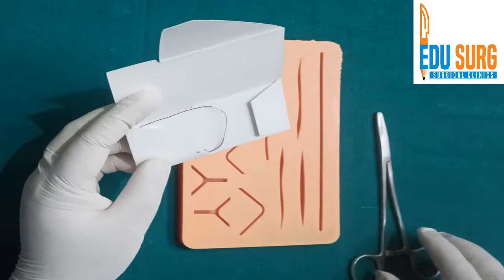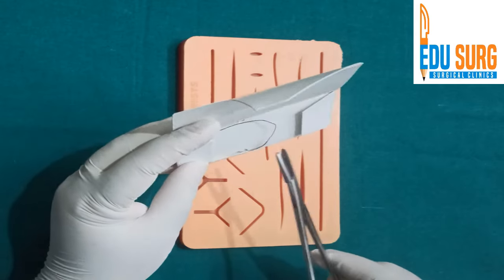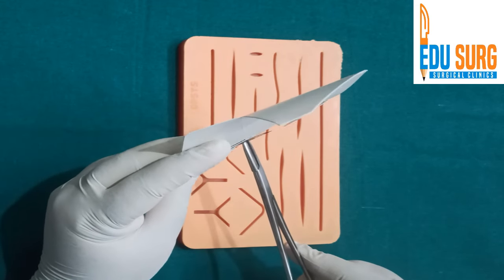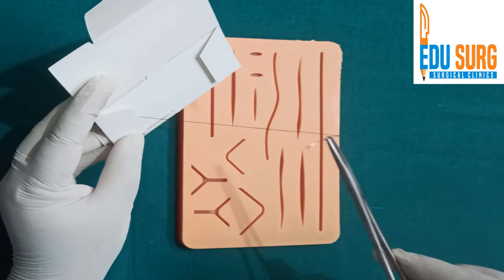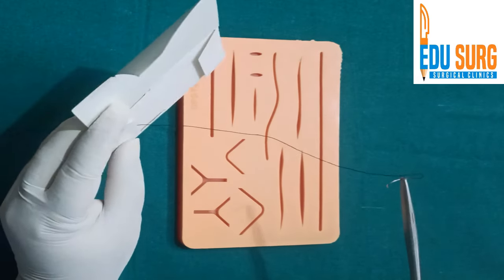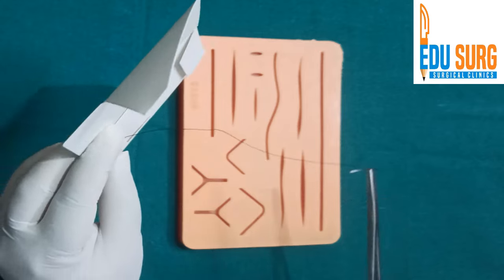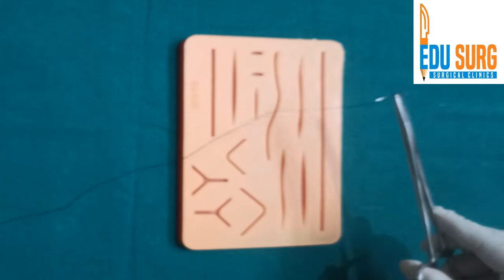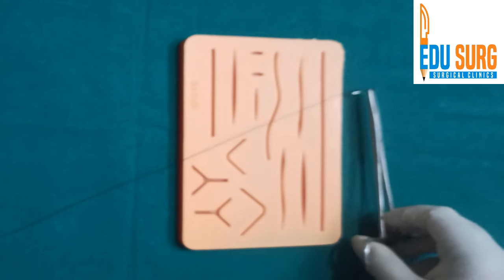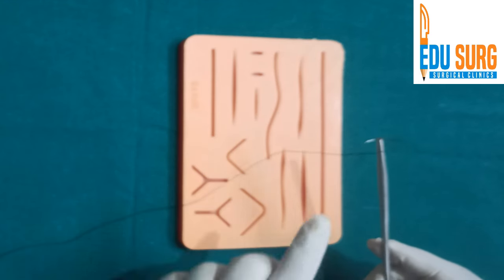The key point is not to hold the needle with your hand. Hold the needle in a way that you are loading the needle holder and then the assistant or the sister pulls this out so that your thread is free.